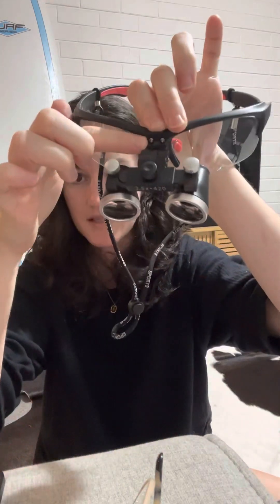I've actually got some prescription safety glasses coming with my reading prescription in them, and I'm going to unscrew these and stick them onto those. So it's a great cheap alternative. I think that if you're going for loupes, from what I've sussed out from talking to a lot of different people, I think ergonomics are a big part of what people are looking for. So the ergo loupes are probably a good look. But if you're just looking for something through the lens or a cheaper option, these are absolutely fabulous.